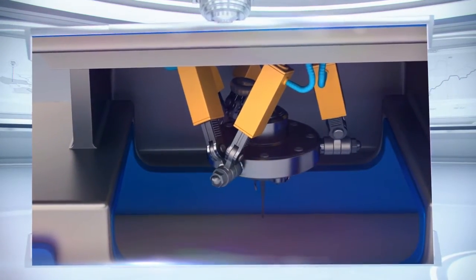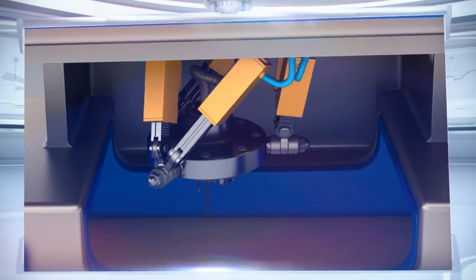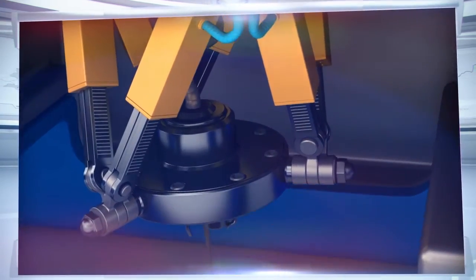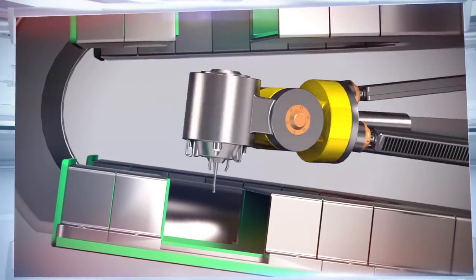In order to make cavity removal faster and more effective, our engineers have developed a prototype for a series of dental micro-drills. Let's see how they work.